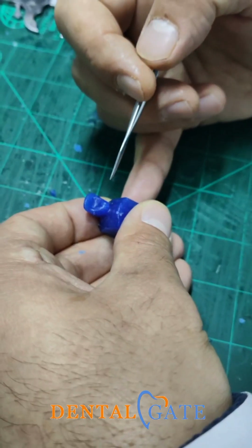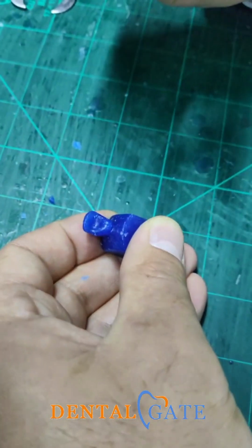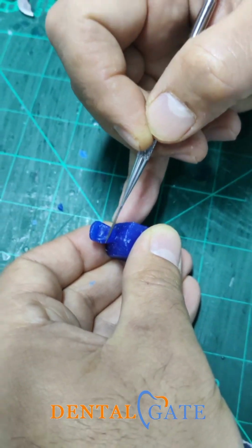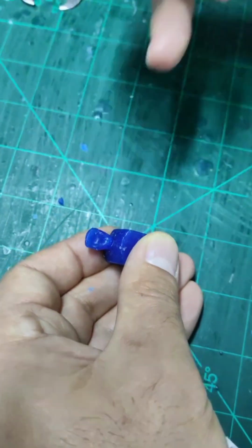So please, regarding the lingual aspect of the lateral, we need two thick marginal ridges. Okay? This is what I mean. So regarding the prominence of the cingulum, it should be in accordance with what? Combined.